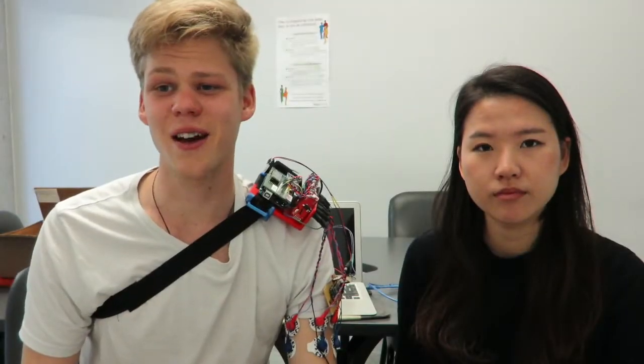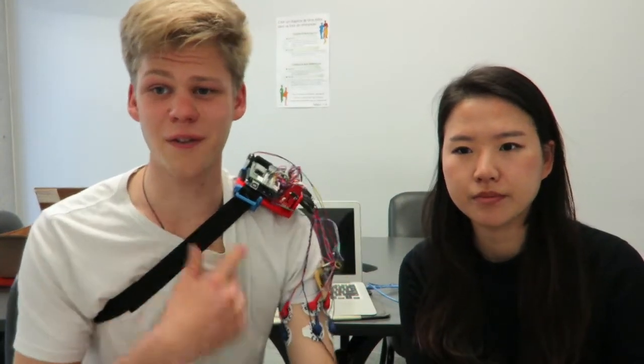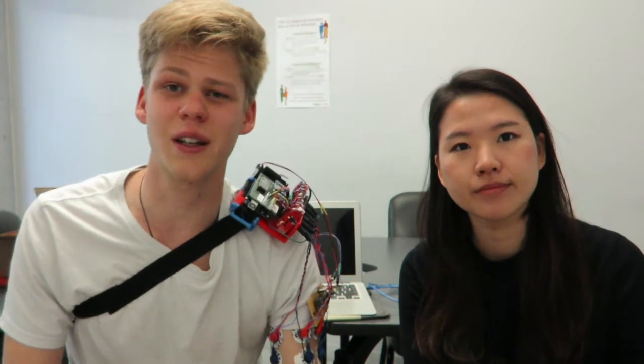These two sensor types are a good example of a cooperative sensor combination since they measure different aspects of the same phenomenon. This has the advantage of providing a higher dimensionality of analysis, which is particularly useful in situations where fine control is needed, such as with powered prosthesis limb control. It is therefore the purpose of this system to be used for a powered prosthesis for a transhumeral amputee.